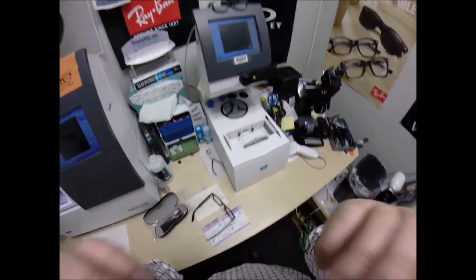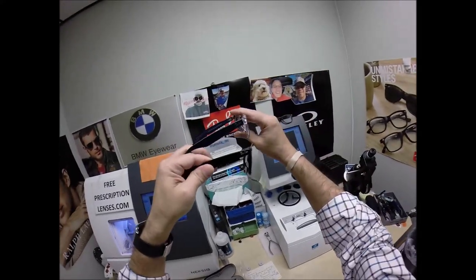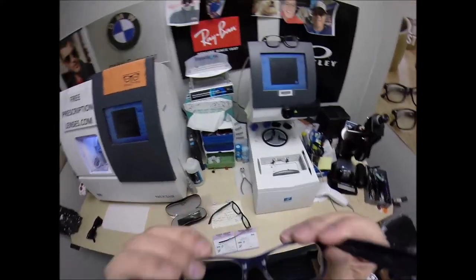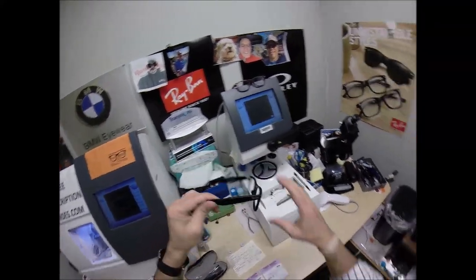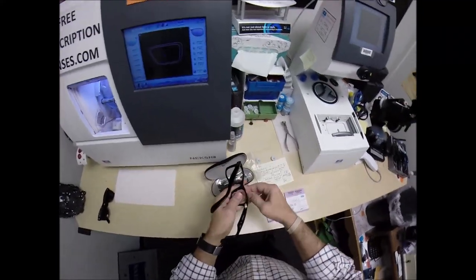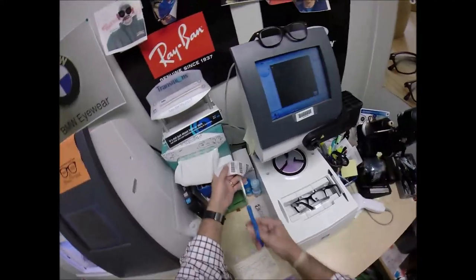They redesigned the frames in 1992 — this is the new Wayfarer. The original Wayfarer is a little bit more perpendicular; this still has that angle in it, and I believe they have the 4340 now which is this frame but straighter out. I'm going to take out your original demo lenses — one of which says Ray-Ban — and put the frame into the tracing element of my blocker. I need to assign a number to it.